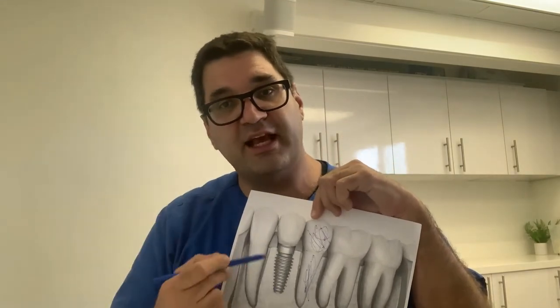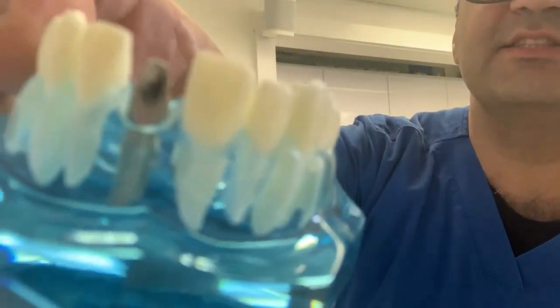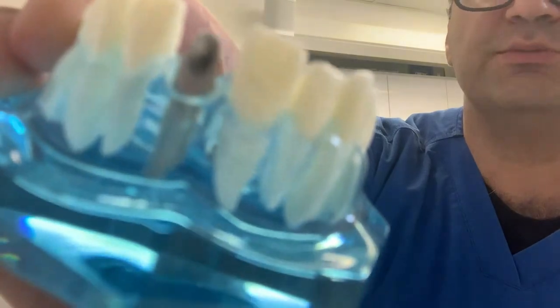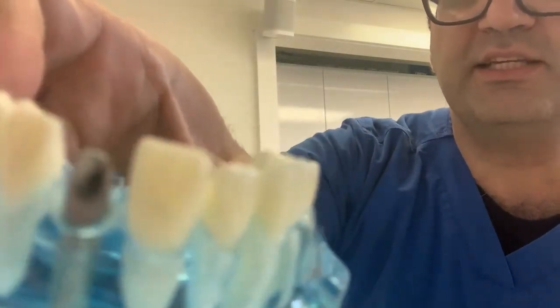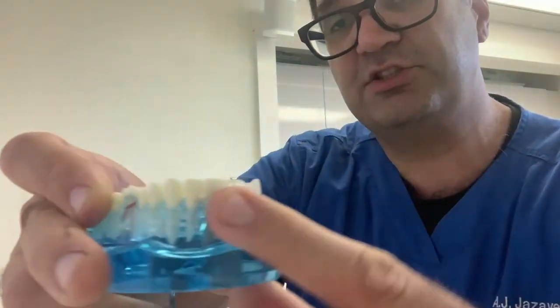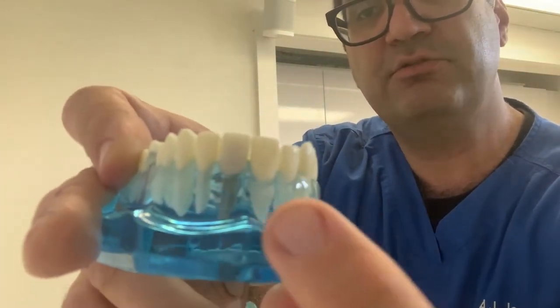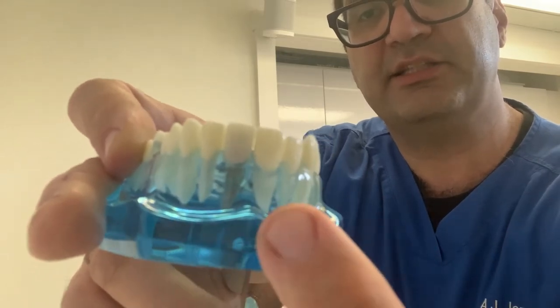Then on top of that goes the abutment, which is the intermediate, and then the crown sits on top of that. Let me show this to you on a model. So that's the screw, which is inside the jaw — shown in blue. The part that's sticking above it is the abutment, and then the crown basically sits on top. That's the part you care about — that's what people see when they look in the mouth. No one's going to know that that's an implant versus a natural tooth next to it, if your dentist does a good enough job.